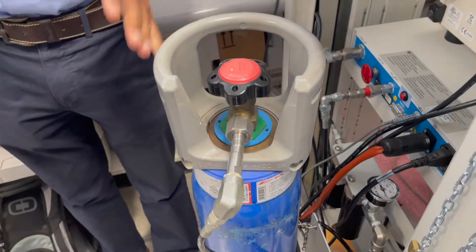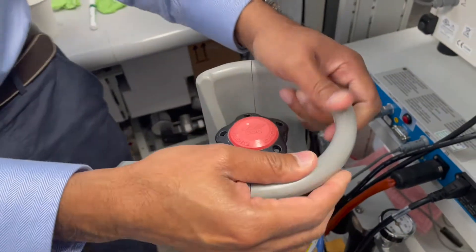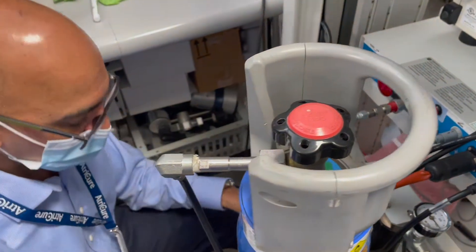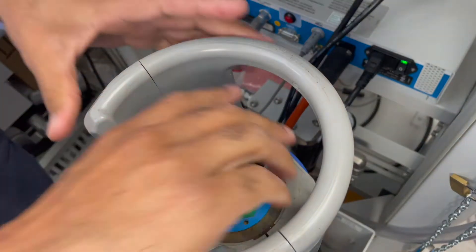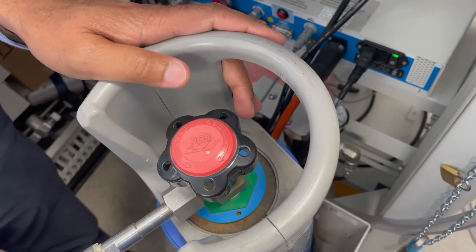The surgeon says I'm done everything can go. One important thing that you must do is to vent the machine. The first thing you're going to do is turn the gas off. If you don't turn the gas off and you start venting the machine all you're going to do is empty this bottle.